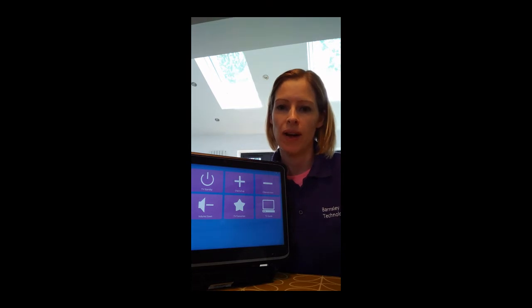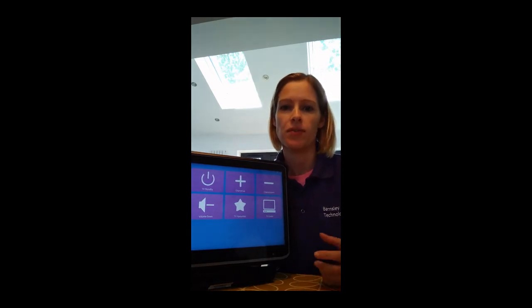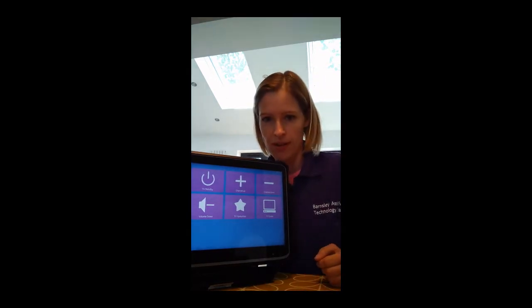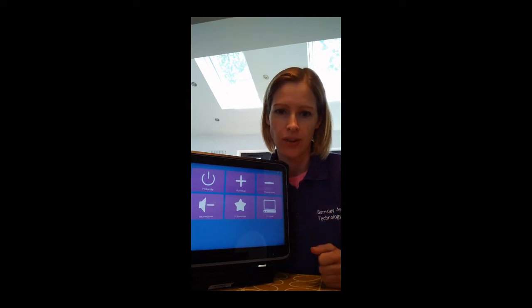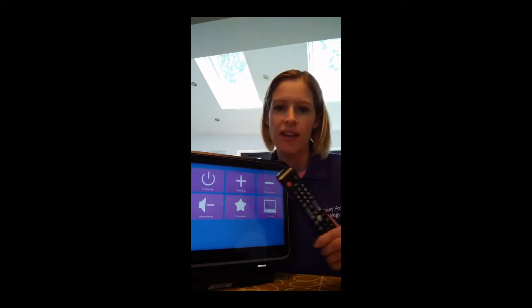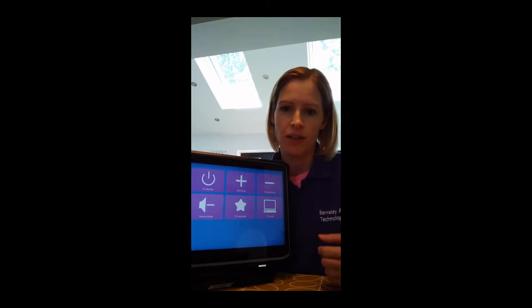This is a video about how to set up your Grid Pad device to control your TV at home. It's quite likely that you might have been sent out a Grid Pad from the Barnsley Assistive Technology Team and that we have asked you to enter the remote control signals yourself from your TV remote at home so that your Grid Pad will work with your TV. I'll go through the steps of how to do that in this video.